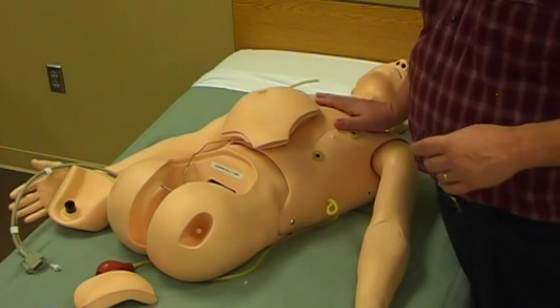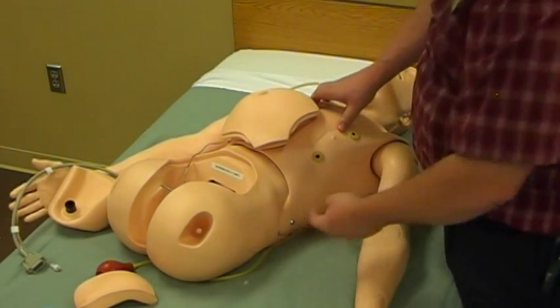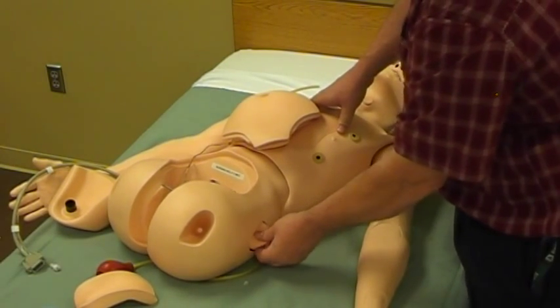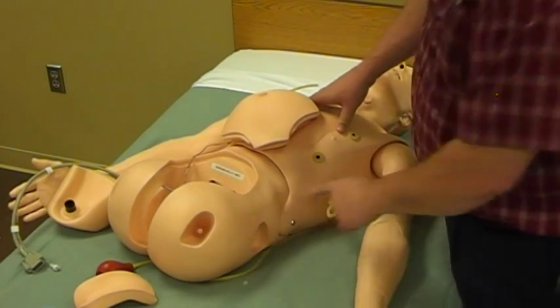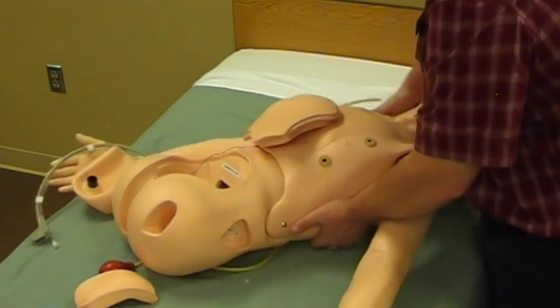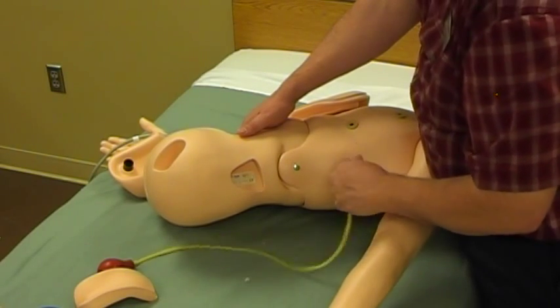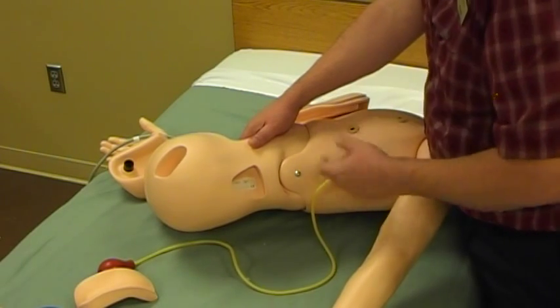Here on Nursing Kelly, on his left hip, there's an injection pad. Obviously this can be used for intramuscular injection simulation. It peels out fairly easily, and on the inside there will be a tag. Hopefully you can see it — that will have what's called a lot/SNR, or serial number.